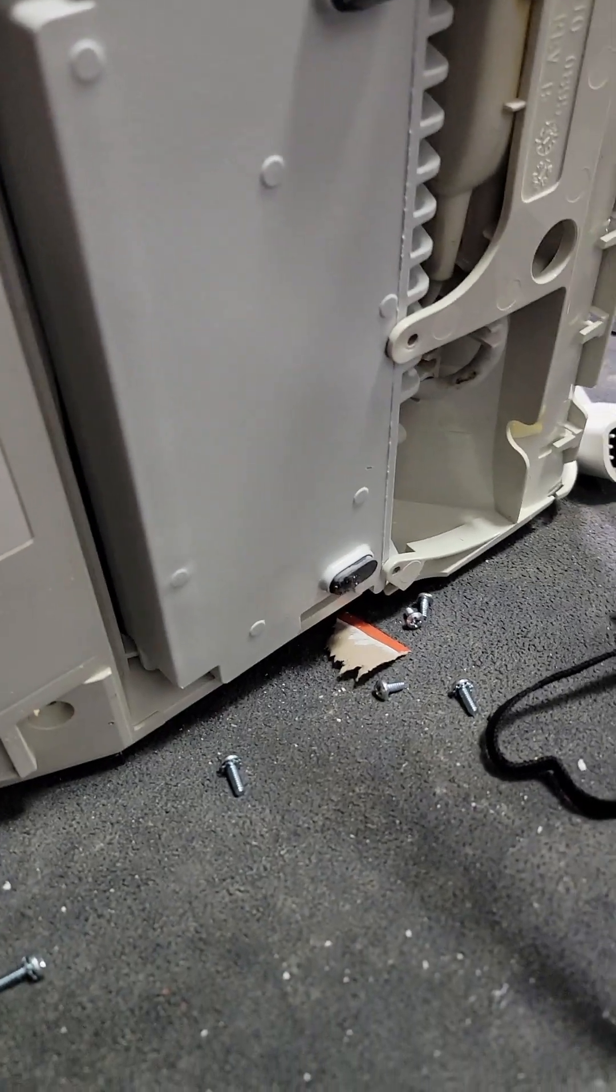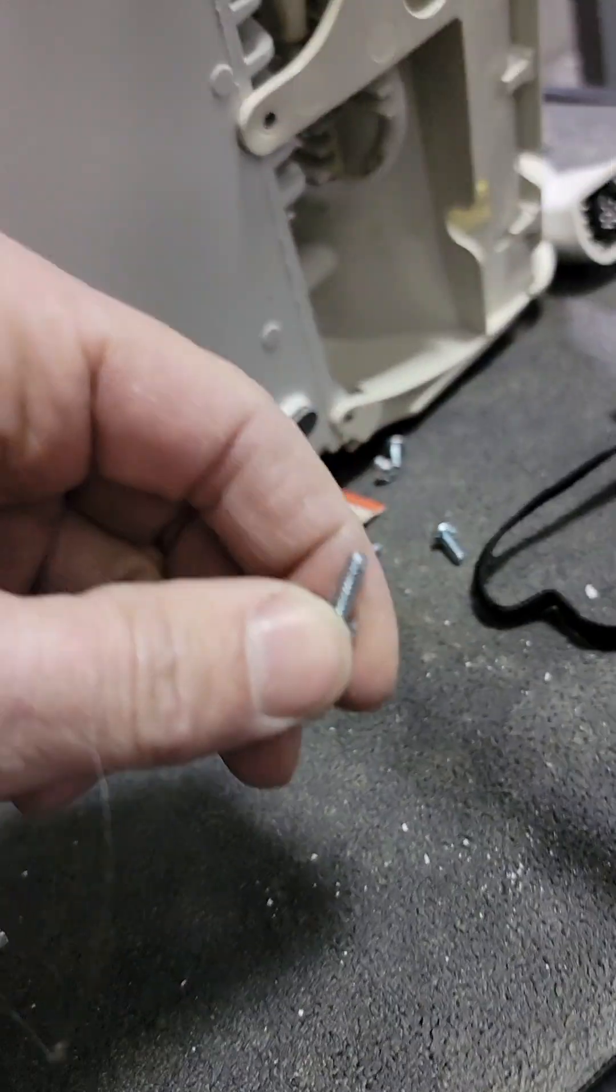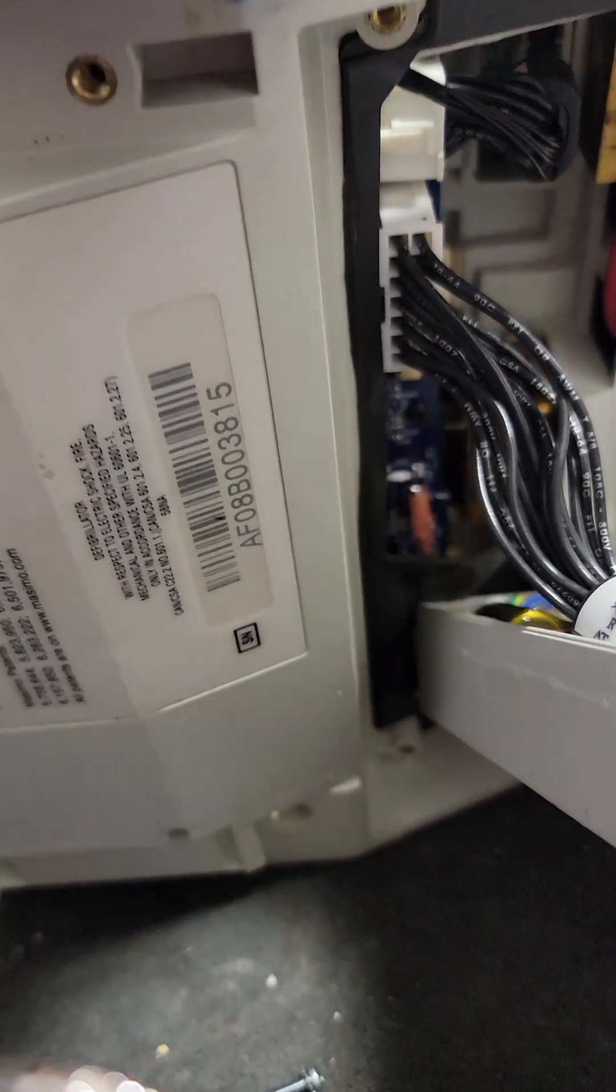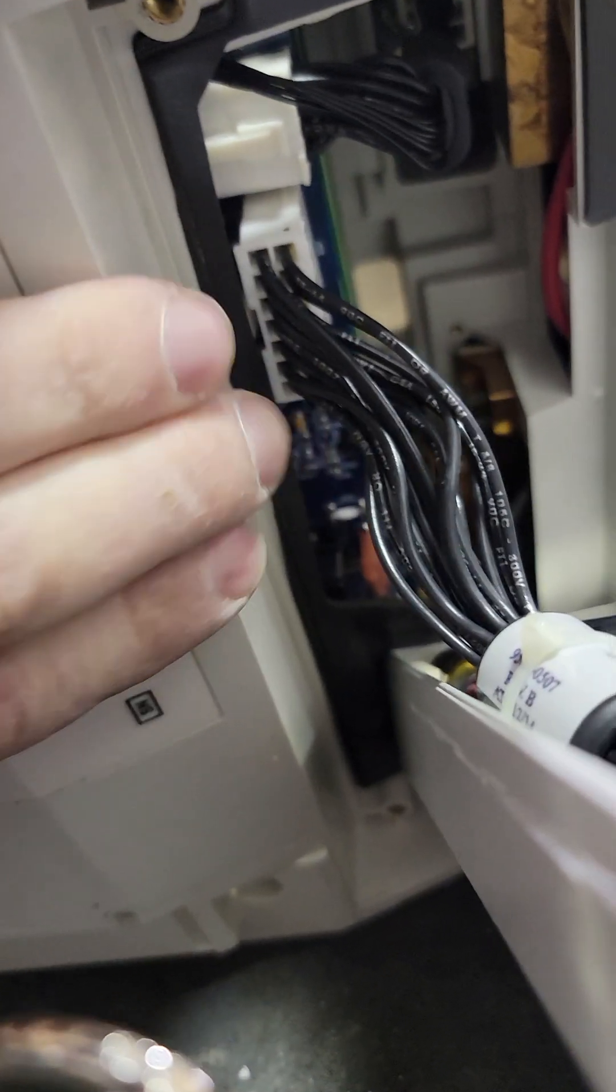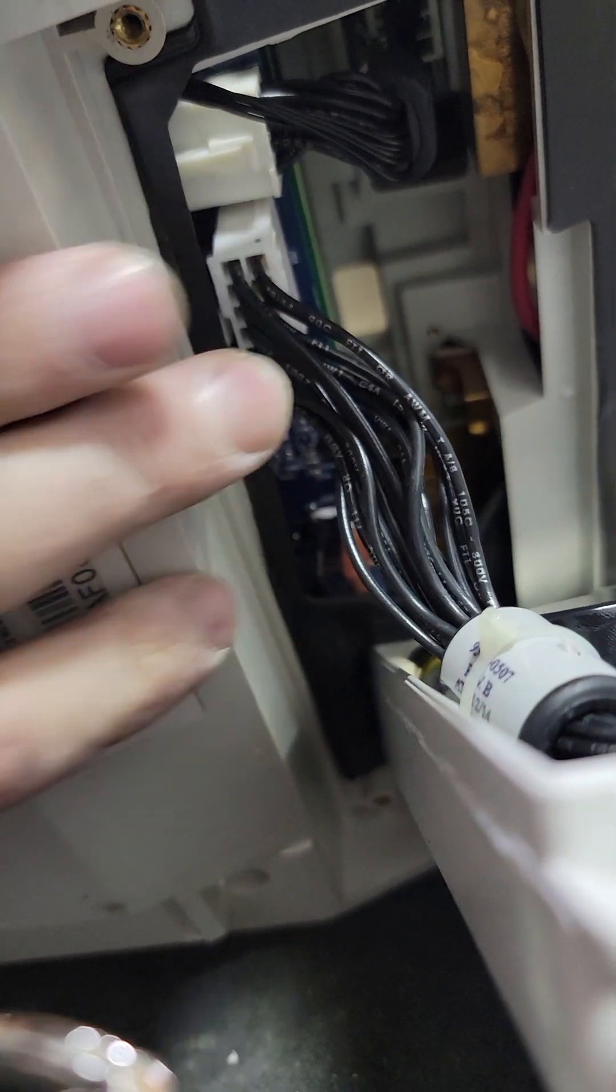I'm watching things as I pull it out. It looks like I've got to pull this block down here too, which is just four screws. So you pull those four screws and then the whole assembly comes up with it. You just got to look for this guy right here. Connector is right here. Small Phillips will get in that.